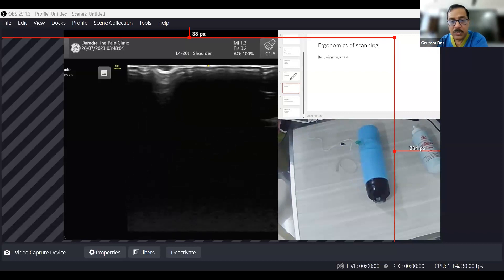To summarize the ways to see the needle better: one, make the angle as minimal as possible — almost horizontal is best, less than 30 degrees also better. Two, make a fine movement to see surrounding structures move and understand the needle trajectory. Three, use an ultrasound needle for better visibility. Four, use machine software that curves the ultrasound beam, reflecting it better back to the probe.